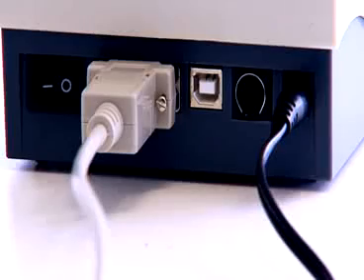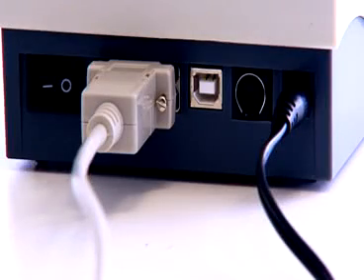Connectors for an external keyboard or barcode reader and a connector for the laboratory IT system or PC come as standard.